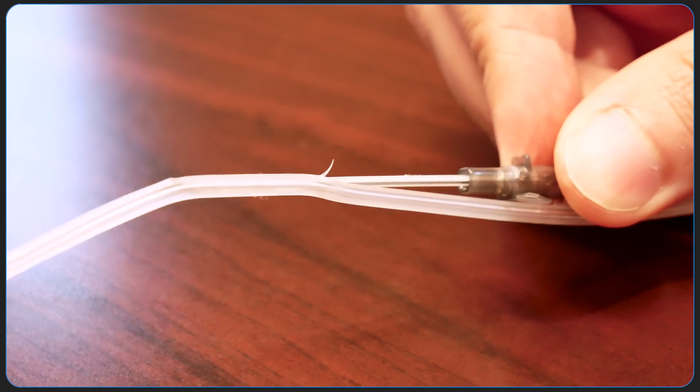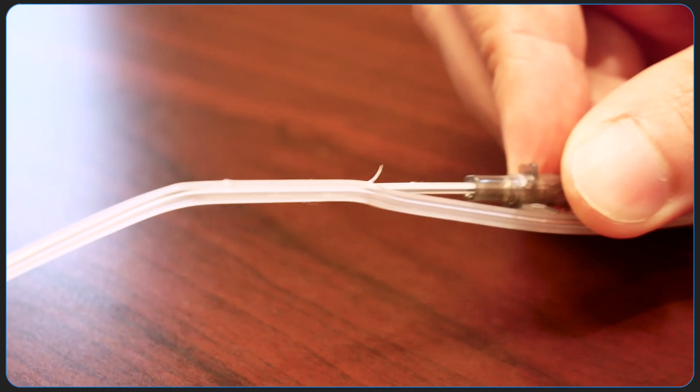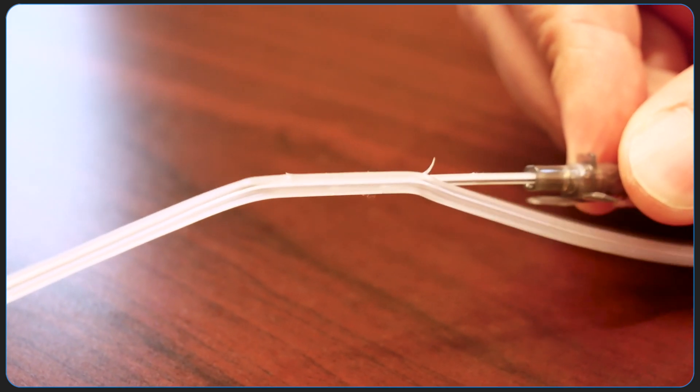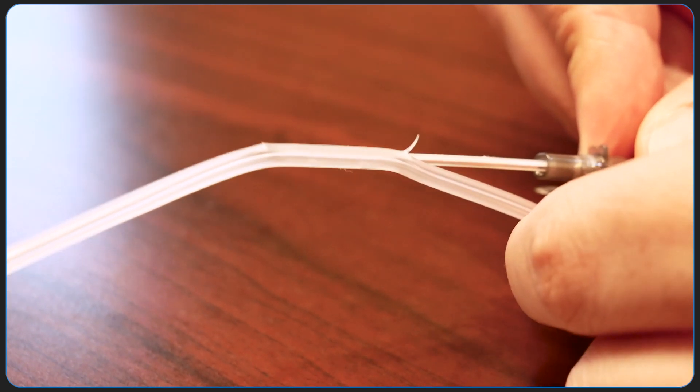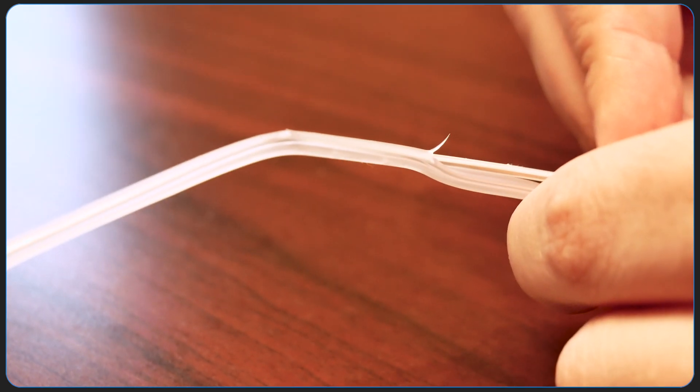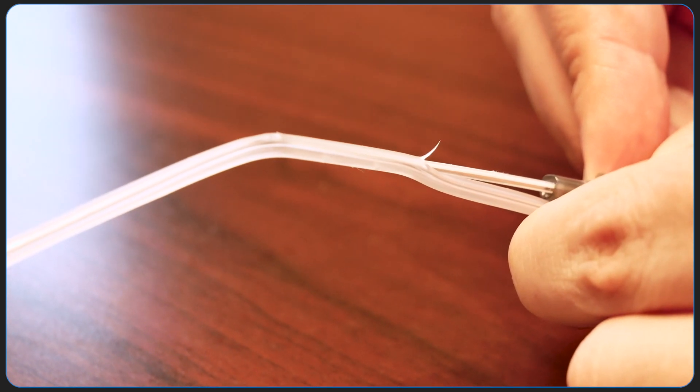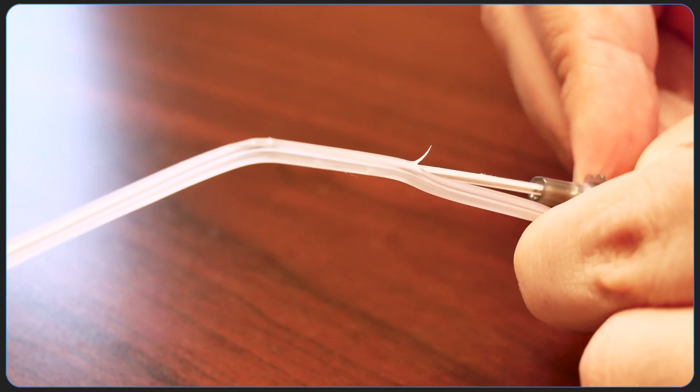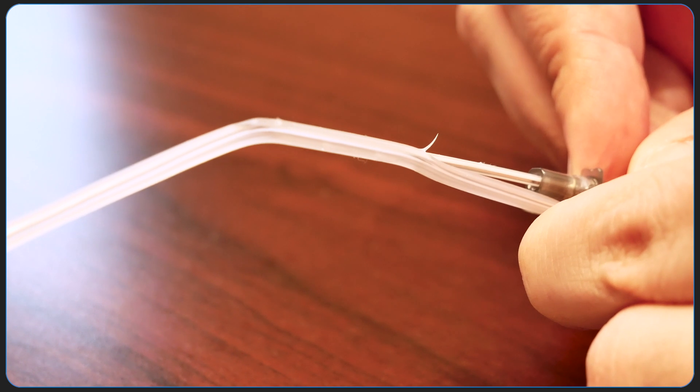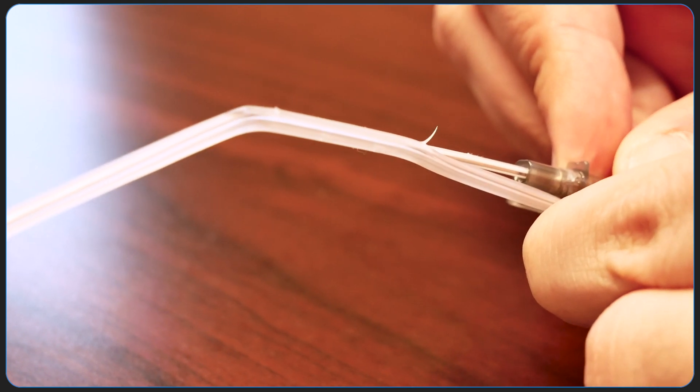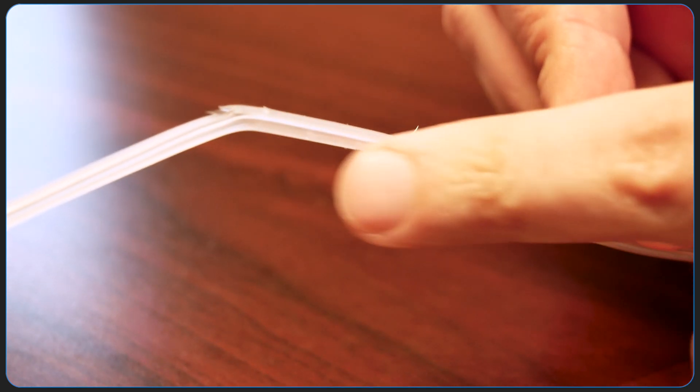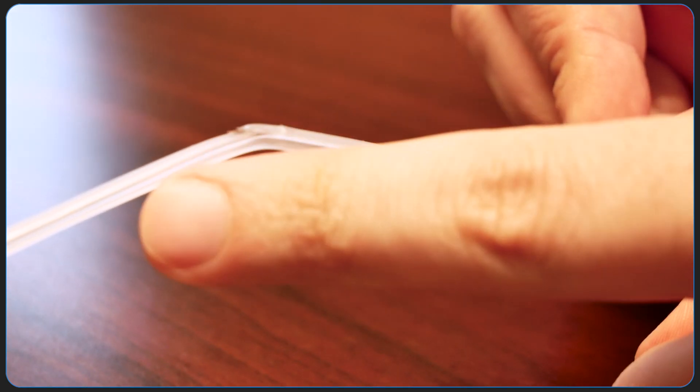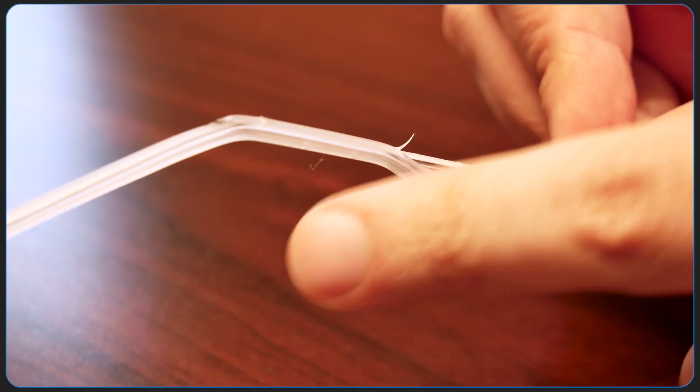Conversely, if I try to get this to go through the superficial part of the vein, if I try to go through the front wall, look at the angle that I'm giving there. It's not going to cut because that cutting tip, in order for it to be exposed to have access to this anterior wall, I have to overcome the entire angle of the bevel, which we said was maybe 20-30 degrees. So in order to go through, I got to really exaggerate it like that. And then I'll have access to going through.